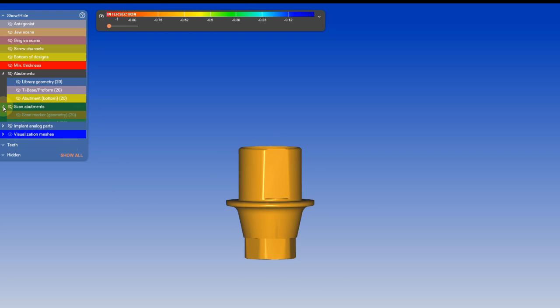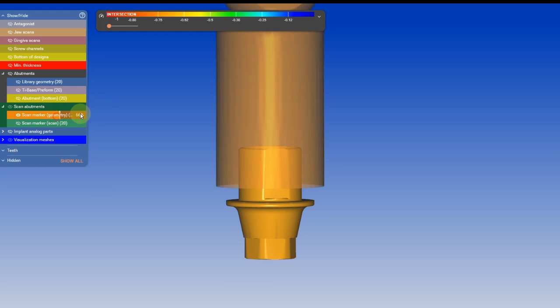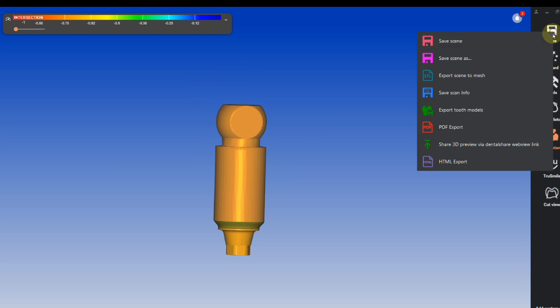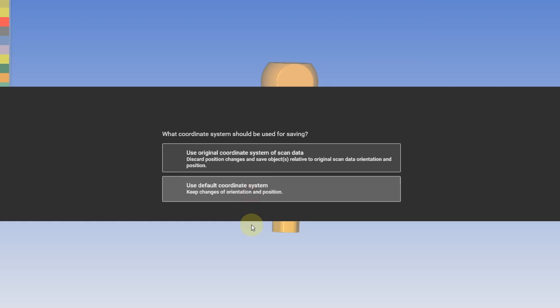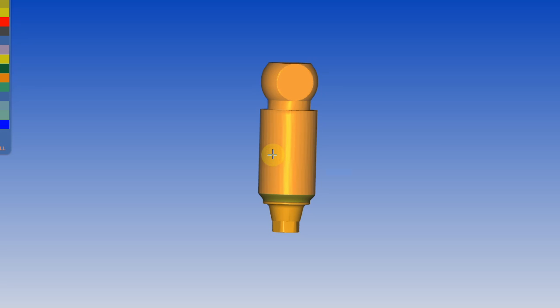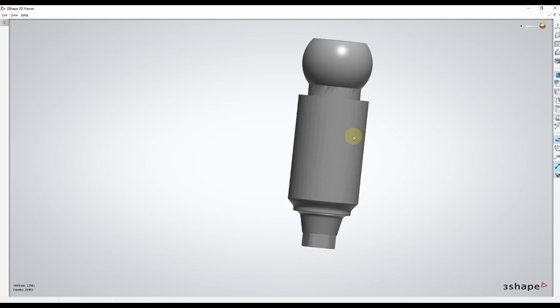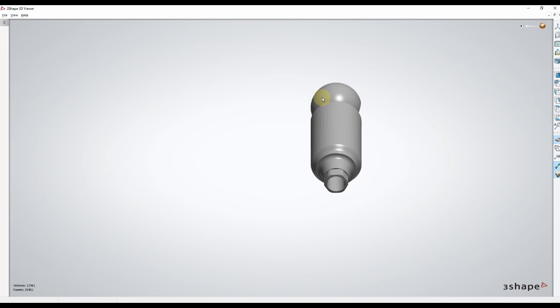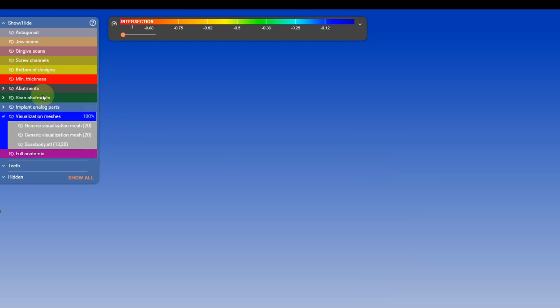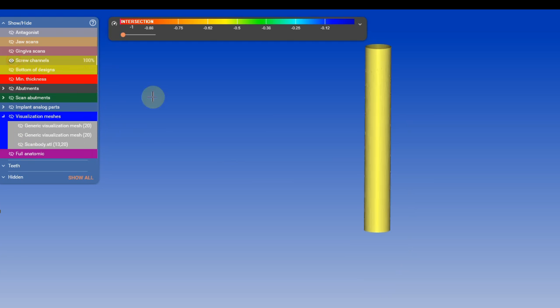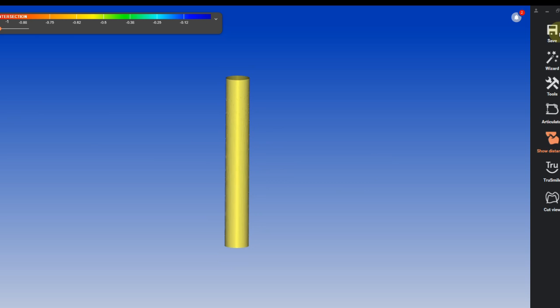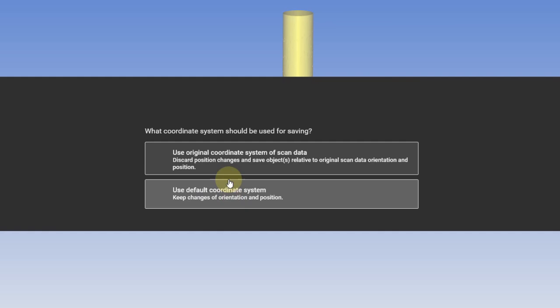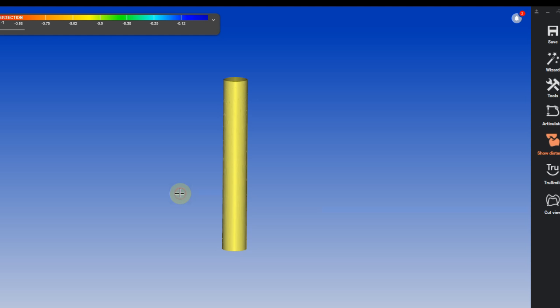Now let's see what's going to happen if we bring in the rest of the files and export it as one file. As you can see, we're going to have a hollow mesh, and that's not what we want because we cannot really use it.